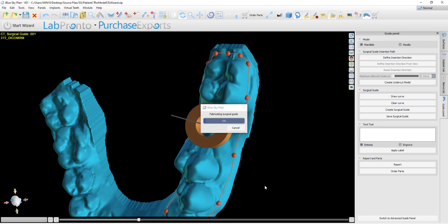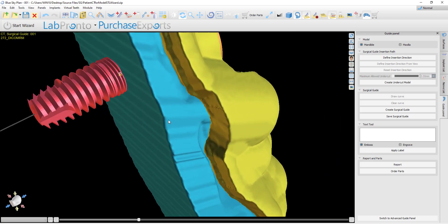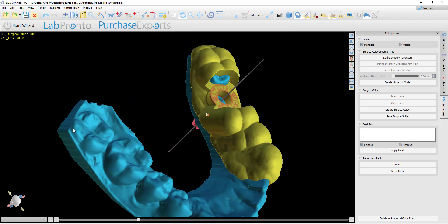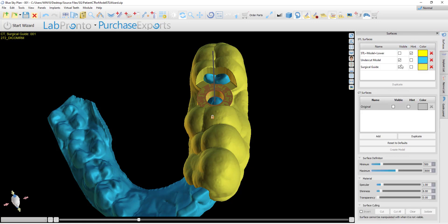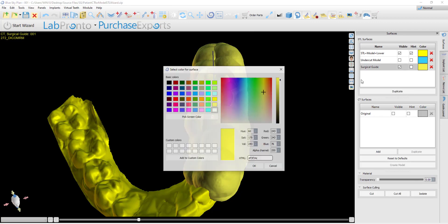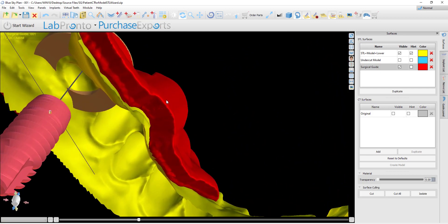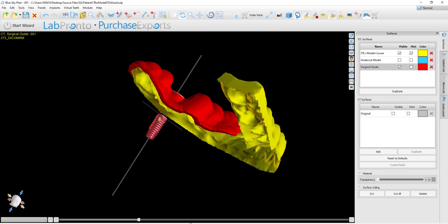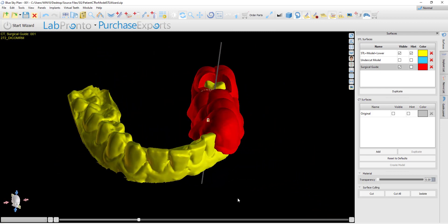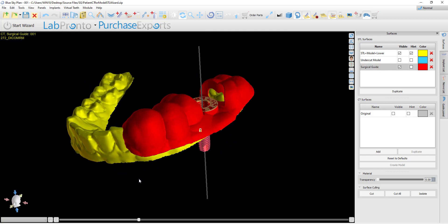Clicking Create Surgical Guide will fabricate the surgical guide. The software now displays the surgical guide on the model with the undercuts removed, and we could go to surfaces and switch to our original model to confirm — let's just change the color so it's not the same color — to confirm the surgical guide on the original model. To summarize, for the user that does not want to change the recommended default setting of a 30-degree insertion path, the process flow is simple and straightforward as it always has been.